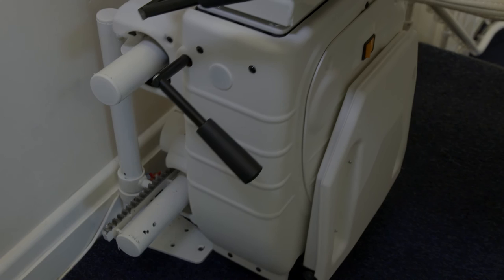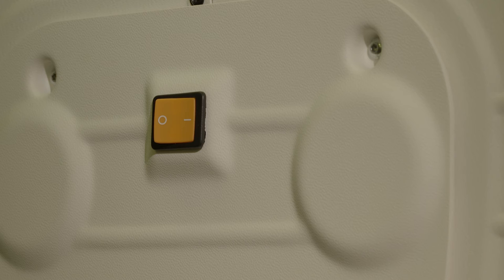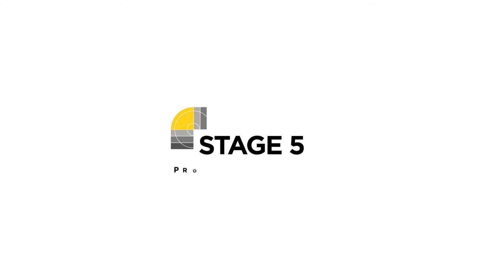Finally, move the stairlift upstairs to the final charging terminal and follow these steps. Switch off the stairlift. Wait 10 seconds. Switch the stairlift on and wait 5 seconds. This will have fully programmed your stairlift.